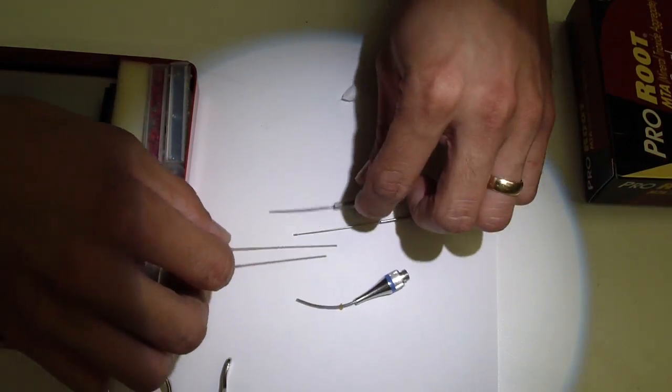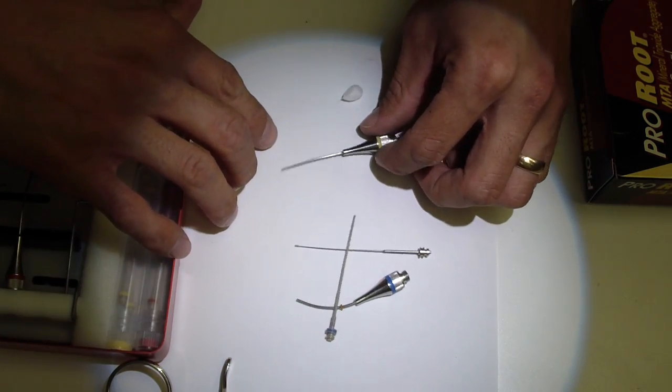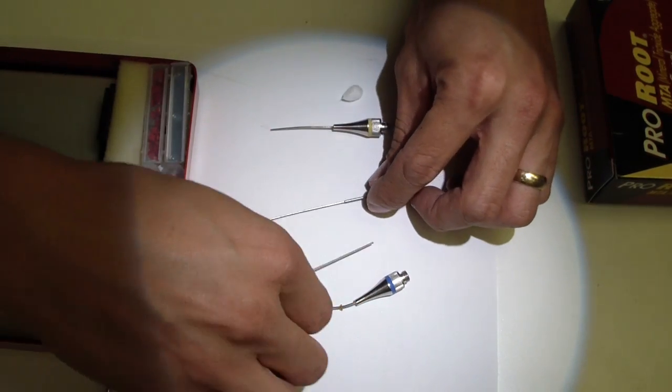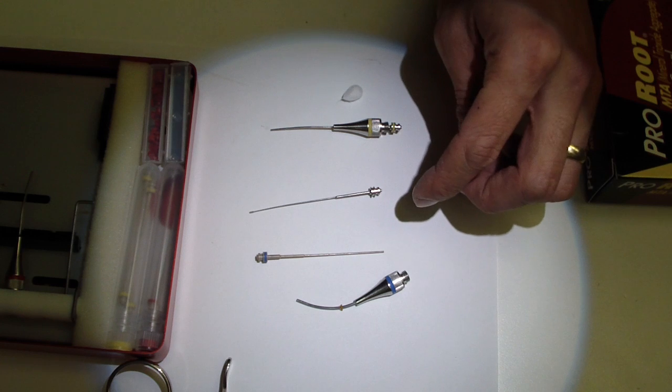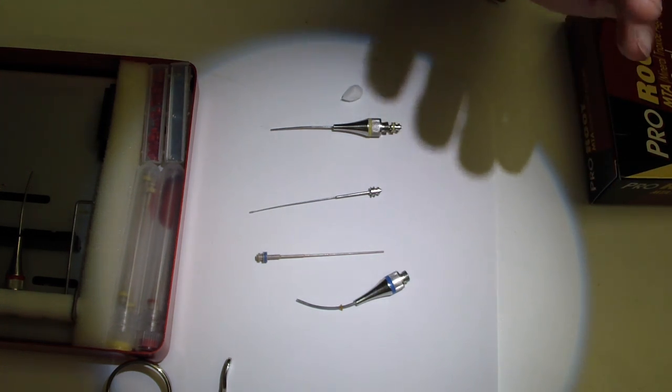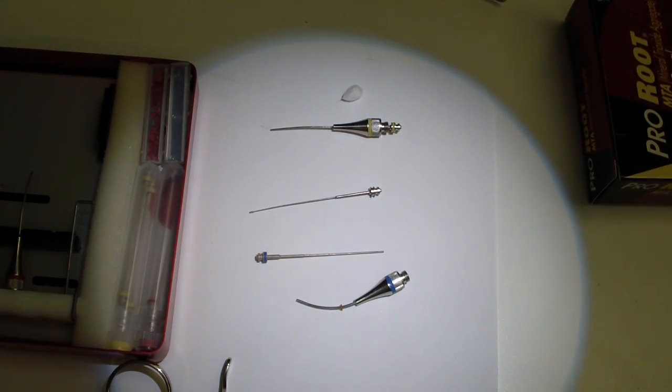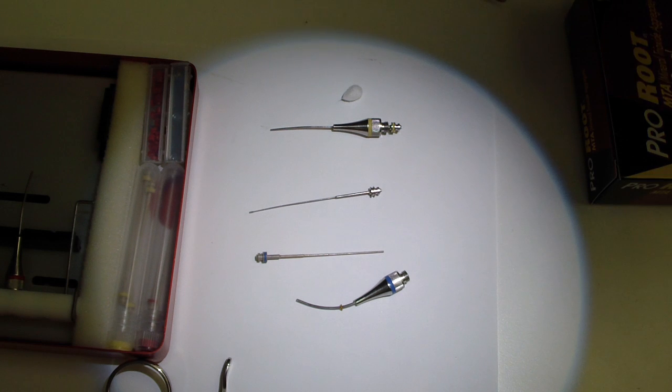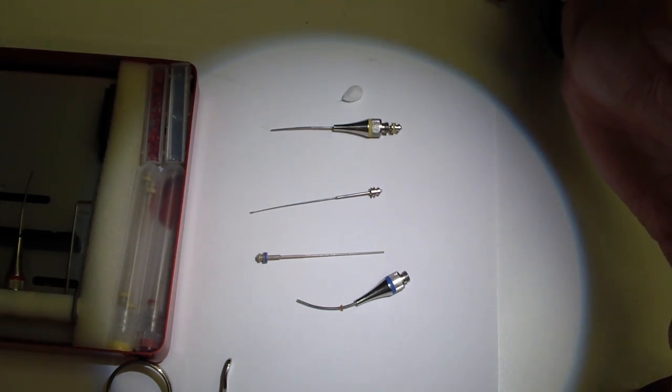With the pistons, as you can see here, there are two different kinds. There's a plastic disposable one and we've got a NITI one. One of the most critical things that's going to slow you up when you pull this out after a couple of uses is that it hasn't been cleaned properly.